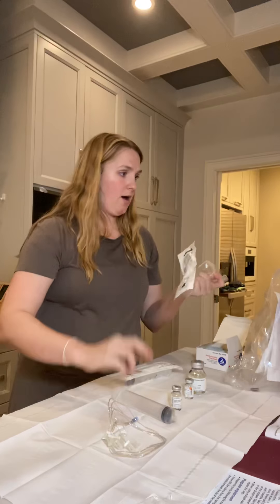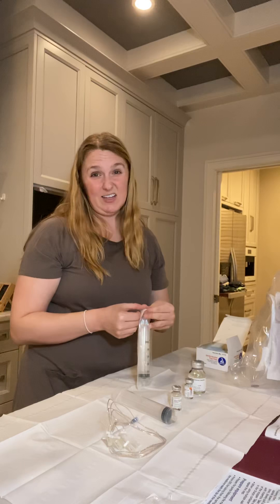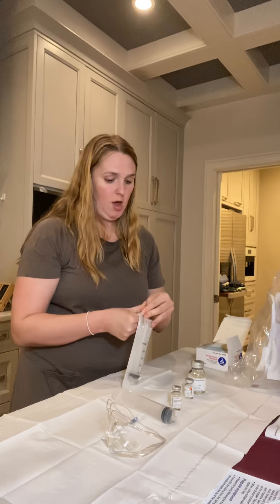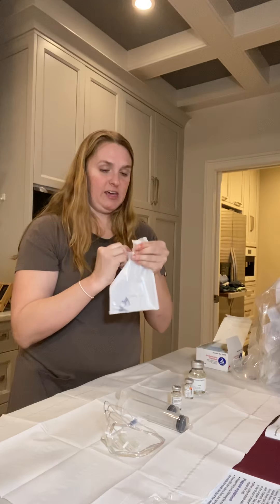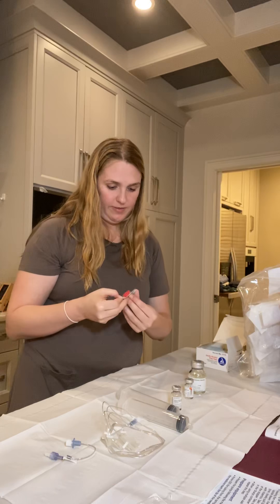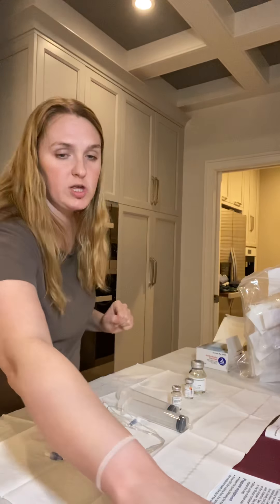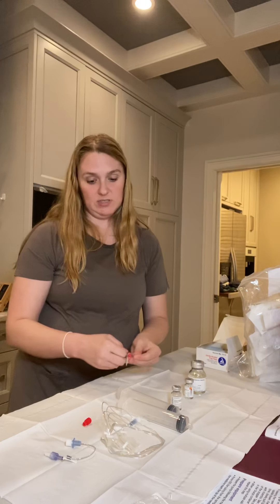There are two giant syringes. I have two specifically because of my dosage — each syringe holds 10 grams and I take 13 grams, so I need the double syringe. Some people have more, some have less — it just depends on your dosage. This connector piece goes between the syringes and the rest of the tubing. These little red caps go on the ends of the syringes. The first syringe I fill will be the one I use second, so I'll put a red cap on that, and when I switch syringes I'll use the other red cap.